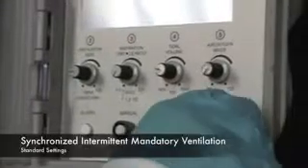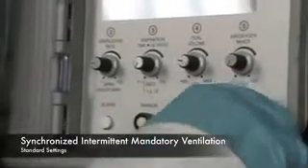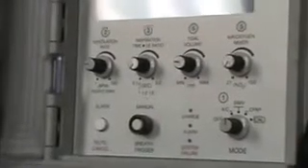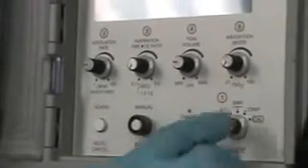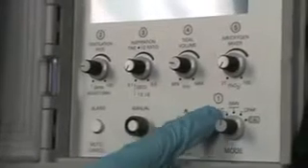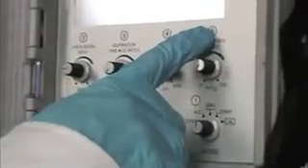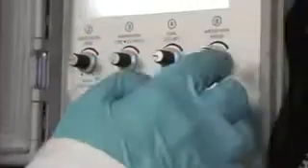The next mode that we could go to is called SIMV. This is called synchronous intermittent mechanical or mandatory ventilation. This is similar to AC in that it has a set rate, a set tidal volume, and a set FiO2, so how much oxygen we're giving to the patient.